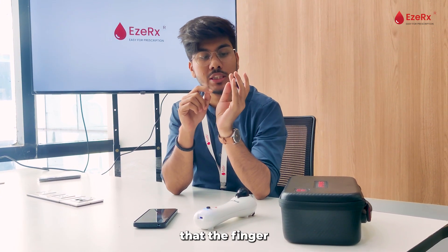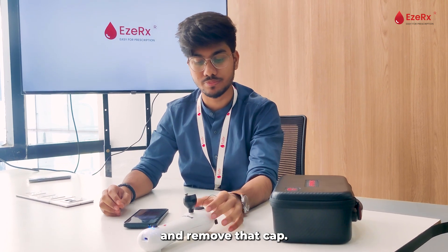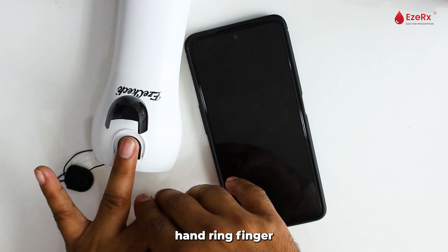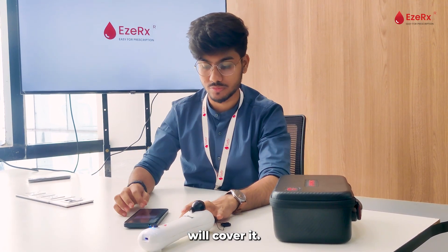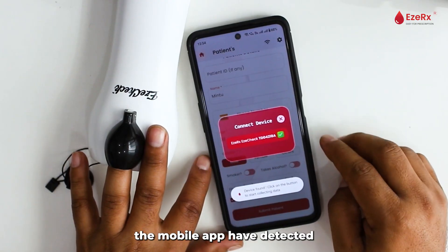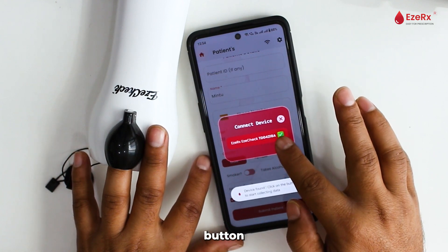We need to ensure that the finger is clean. We will open the lid of the EZ Check device and remove the cap. We will gently place our left hand ring finger into it and cover it. After covering it, the mobile app will have detected the device, and we will click on the button to proceed.